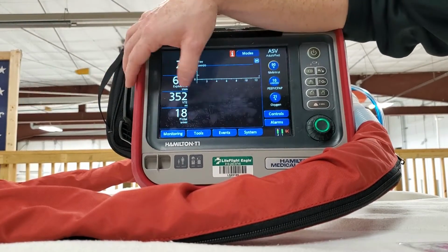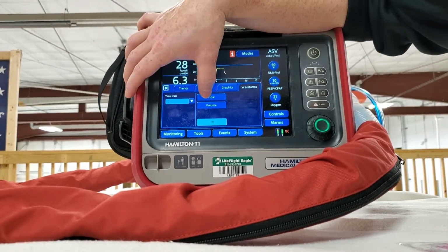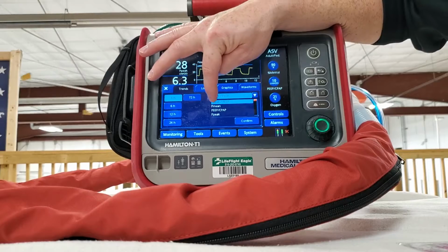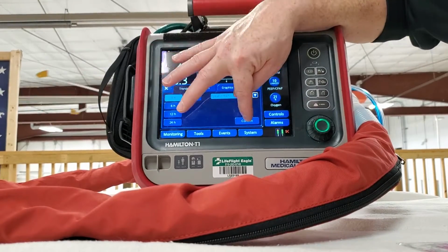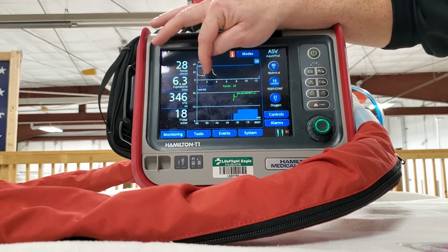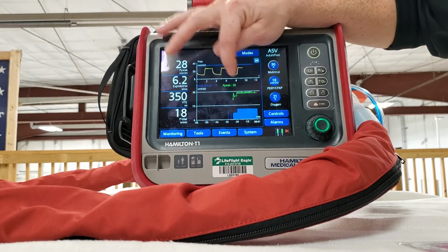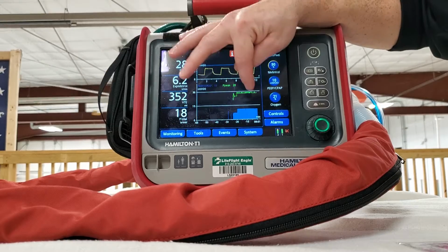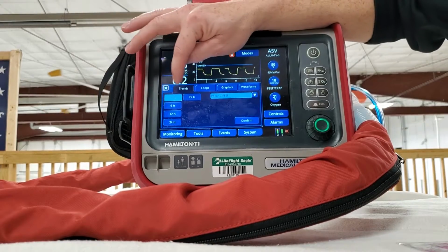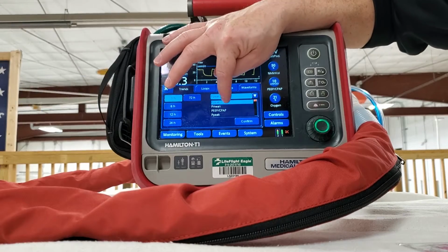You can also just turn it off, but it's not advisable because you want to be able to see what you can see. I'm going to go back to the flow. You can get some trends for your peaks and what you've been trending at your PEEP. So right here, I've been trending my PEEP of 11, and it's color coded to let you know. Green. And this is over 1 hour, 6 hours, whatever it is. Hopefully you never have to use the 6-hour one, because that would suck. But we're going to go back.